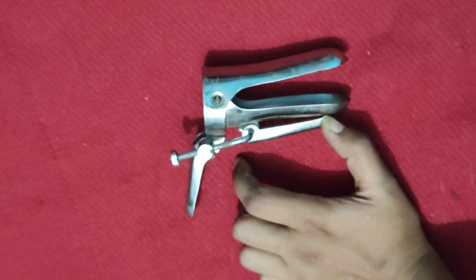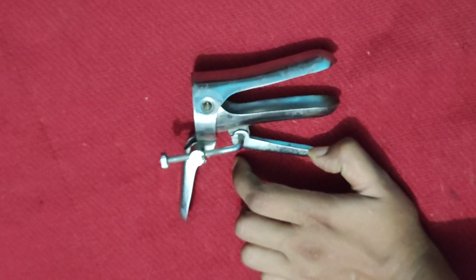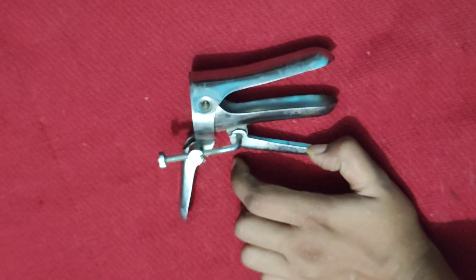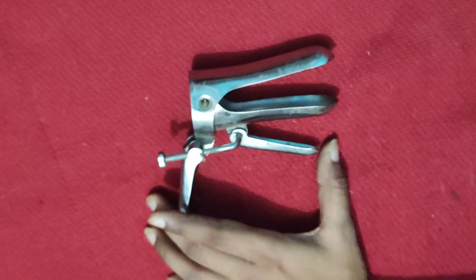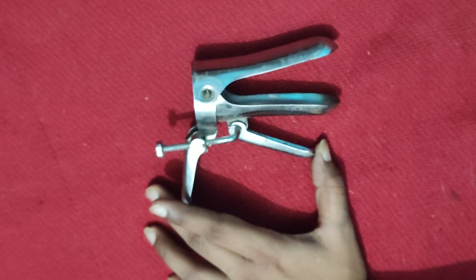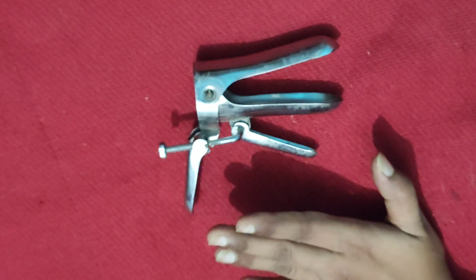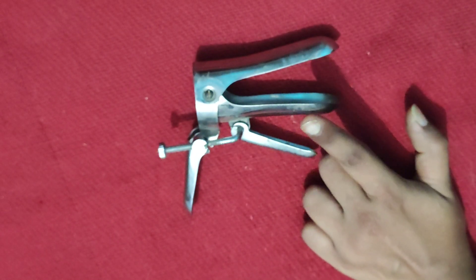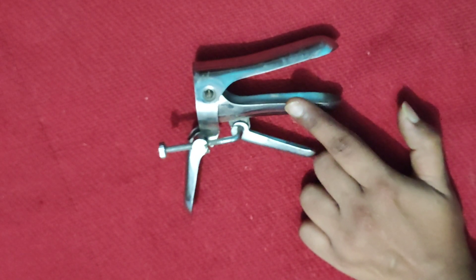Other uses include: performing a Pap smear, endometrial and cervical biopsy, colposcopy, and intrauterine insemination. So in OPD, when using this Cusco bivalve self-retaining vaginal speculum, these are the primary uses.